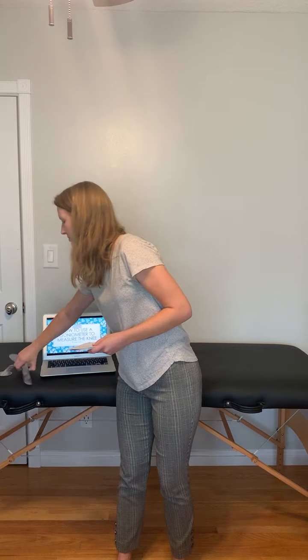Some goniometers are going to have a full circle body, like this one, whereas others will have a half circle body. This is to help with the ease of measuring for the examiner. Goniometers also come in a variety of sizes. This is due to some joints being larger than others. So a large goniometer like the one I showed would be used for the hip, whereas a smaller one, like this one, would be used for smaller joints like within the wrist. Any size can be used for any joint, but it all comes down to practicality and accuracy.